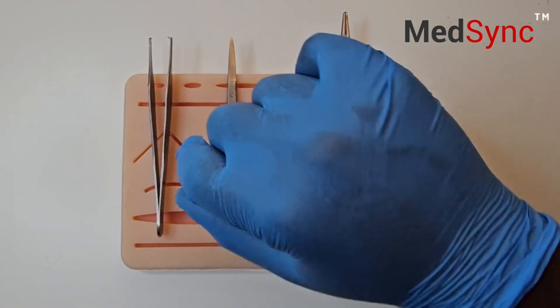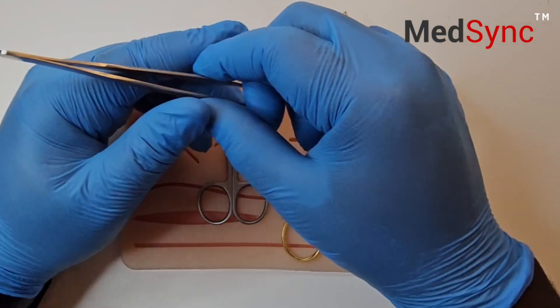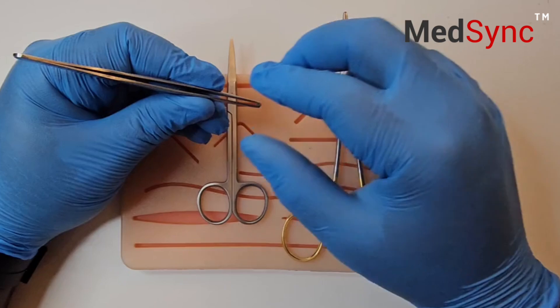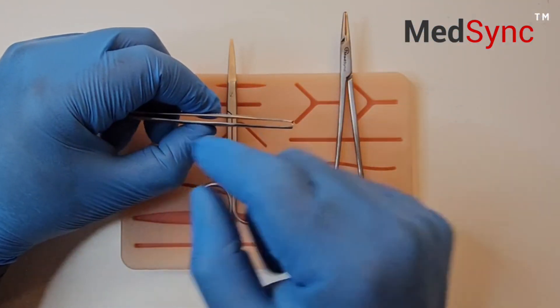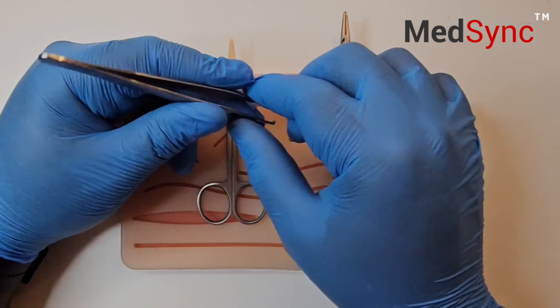The Adson tooth forceps. It goes in your fingers like this. We're not tweezing eyebrows, therefore the forcep doesn't sit under. We need control and precision.